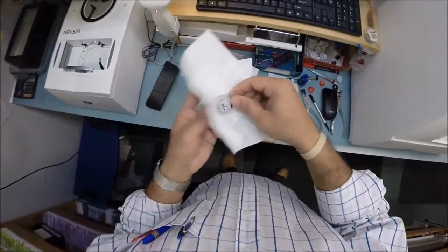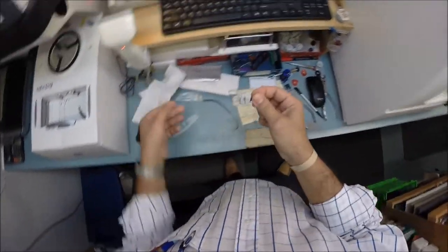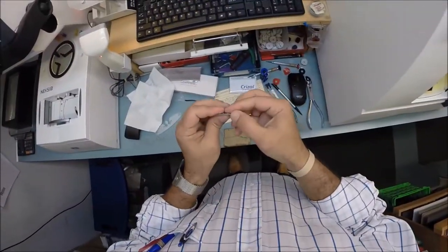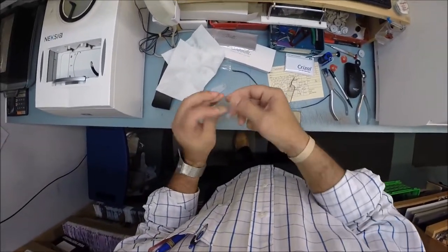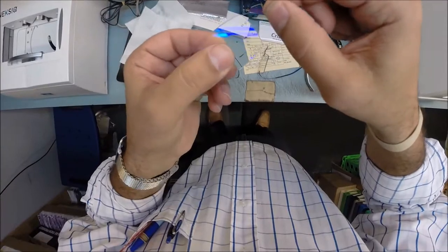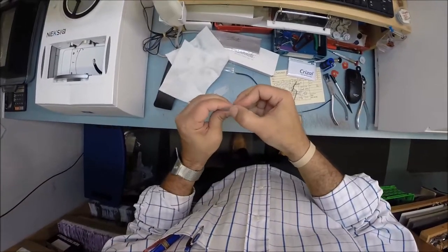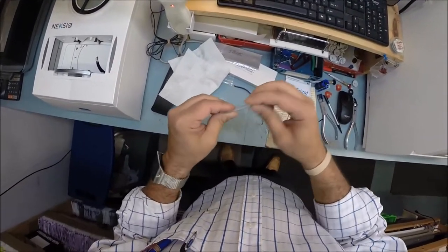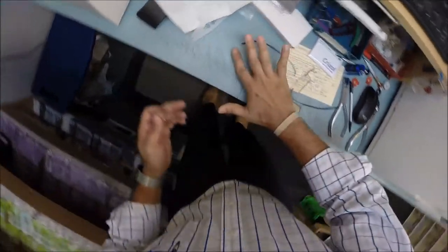The left lens is done. Let's go ahead and take that out and dry everything off. I'll take this block off — it is no longer needed. Again, run my thumbnail around to get any optical sawdust off. I love when it comes off in one big long piece like that. Once I'm satisfied that my thumbnail has gotten all of it off the lens, I collect it neatly into one pile on the counter and then wipe it on the floor — because that never gets old.